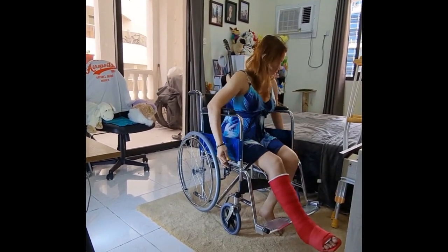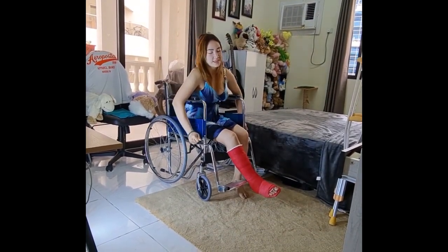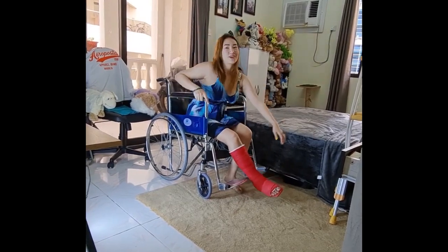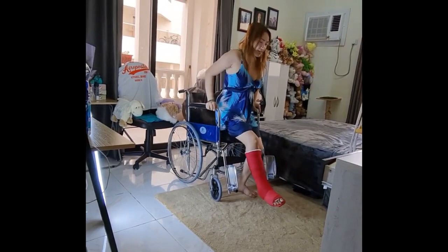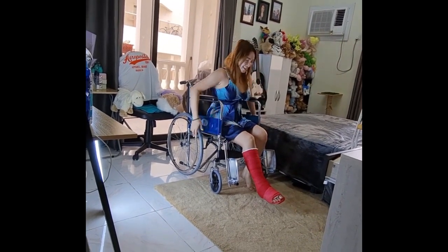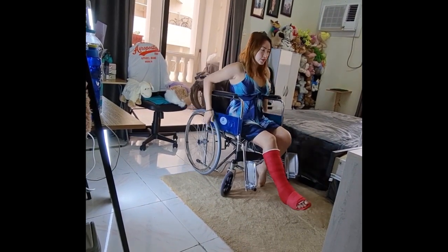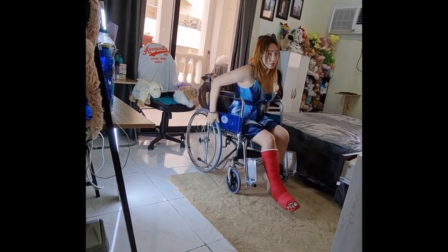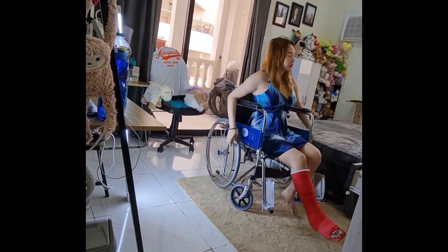The weak side is hanging down because I'm comfortable in that position — just like driving your own car. Also, you can use crutches if they are nearby. You can use them like this.